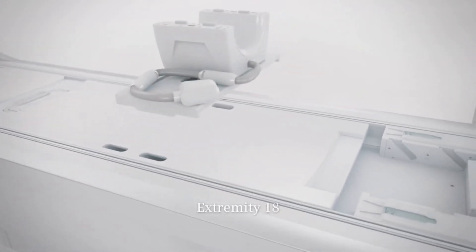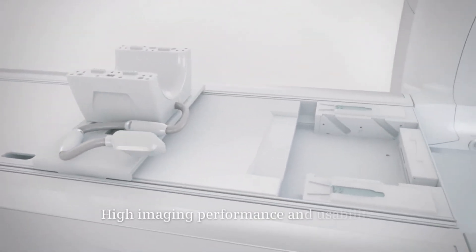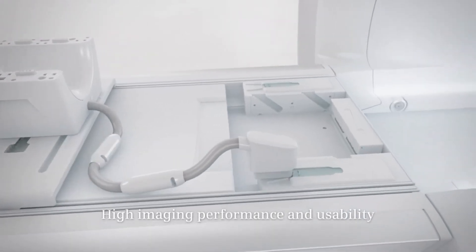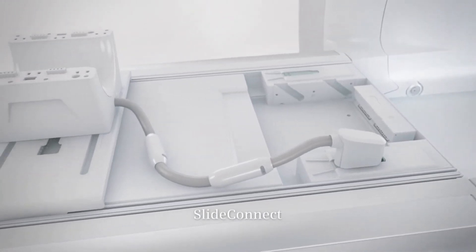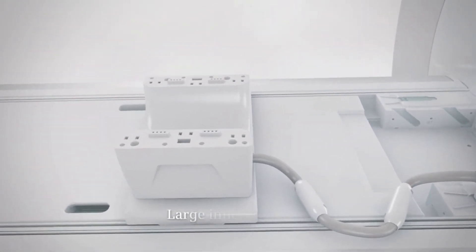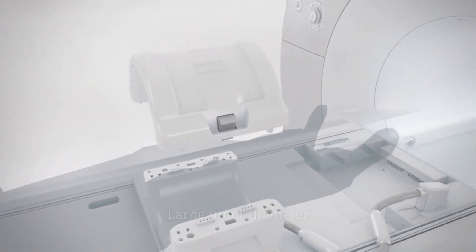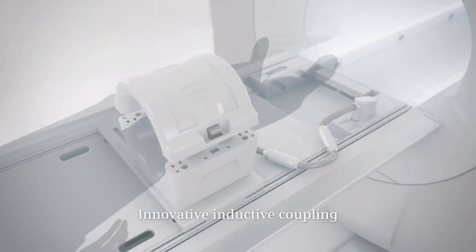The brand new Extremity 18 combines high imaging performance and usability. Slide connect delivers a comfortable plug and play feeling. Its large inner diameter and comfortable flaring fits nearly all needs.